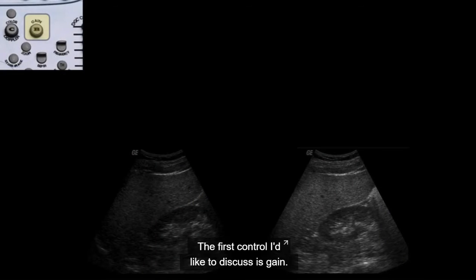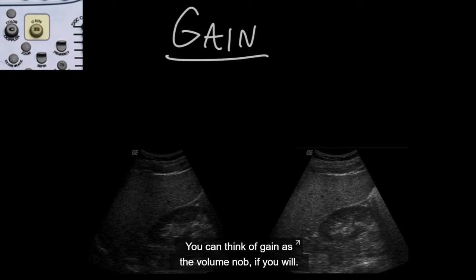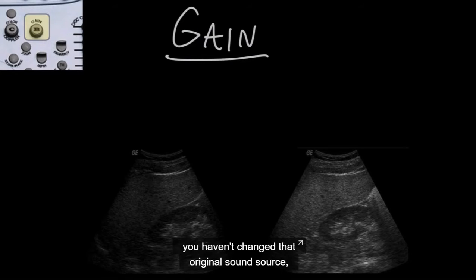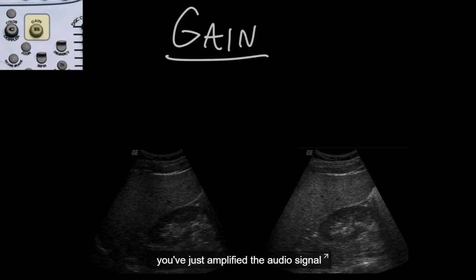The first control I'd like to discuss is gain. And think of gain as the volume knob, if you will. If you turn up the volume on your stereo, the music gets louder, right? Well, you haven't actually changed the original sound source, though. If you're playing from a CD player or streaming an audio file, for example, you haven't changed that original sound source. You've just amplified the audio signal to make it louder. It's the same way with gain.